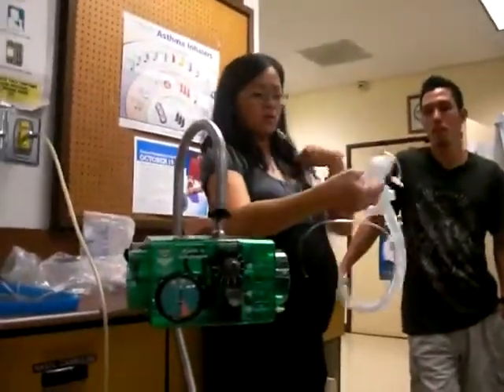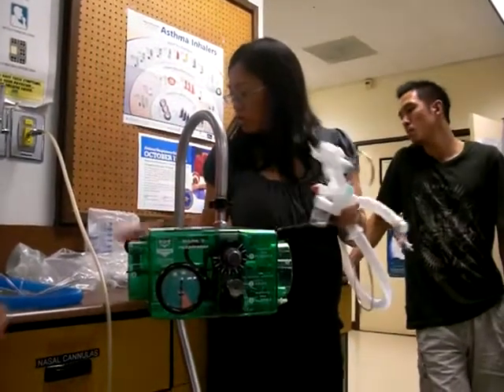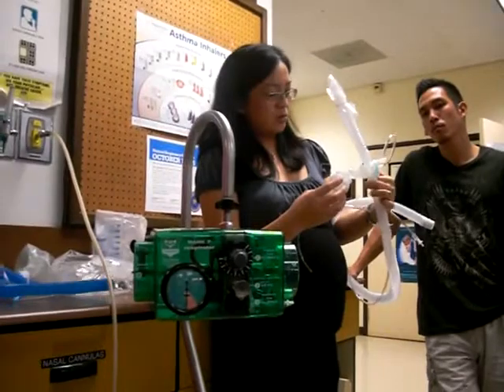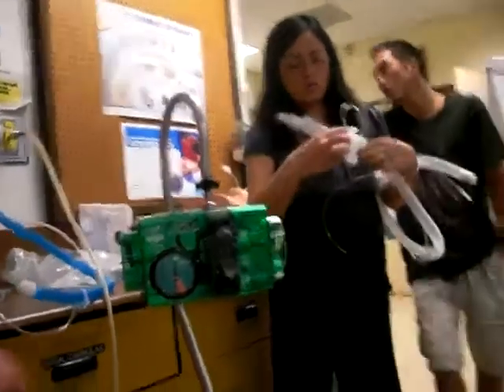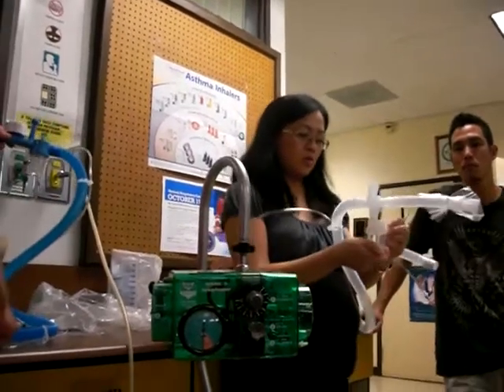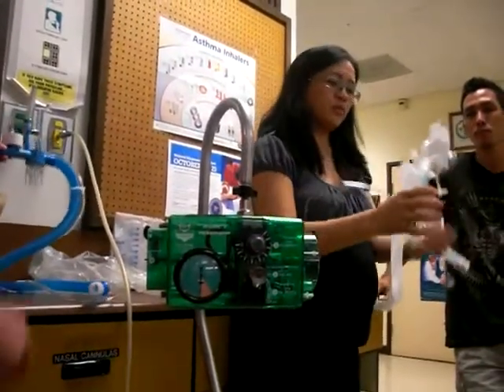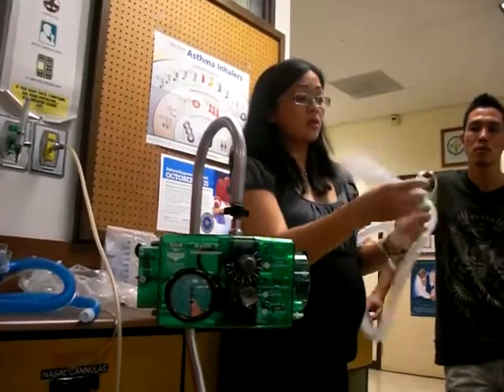Why does that have it on me like this? I need another attachment. She's missing an attachment. This can't be like this — it's missing an attachment. Doesn't look right. So you need to play with this. This one goes here, and this thing goes here.